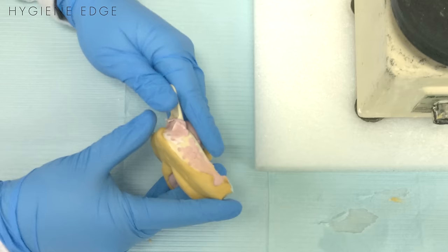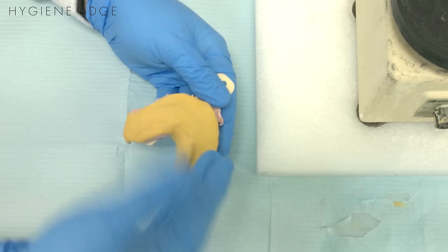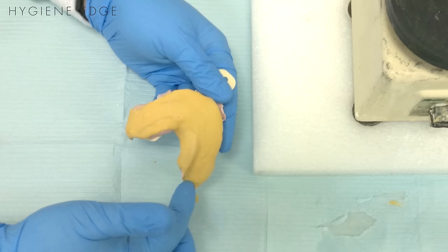So now this is completely cold, I'm going to remove it from the alginate. When you remove it, there's a couple different ways. You don't want to just remove it by one side then the other. You want to slowly rock it out.